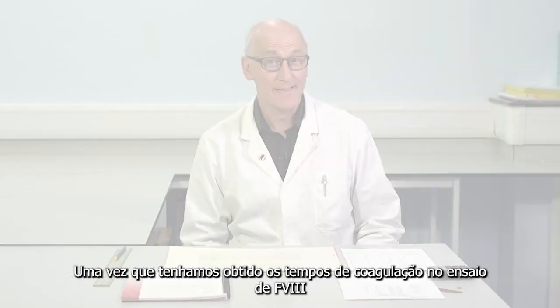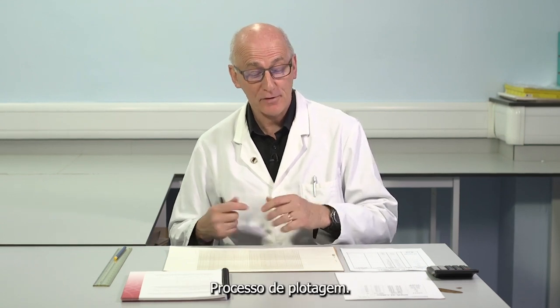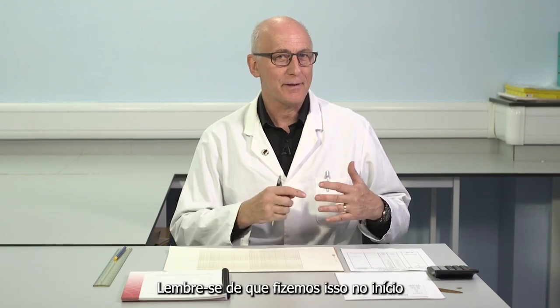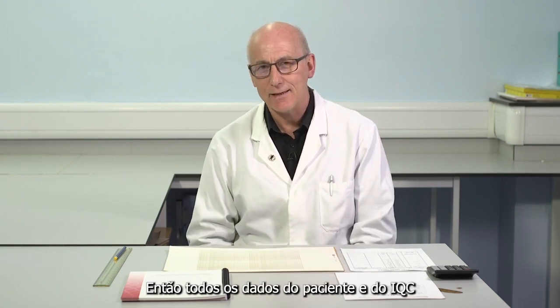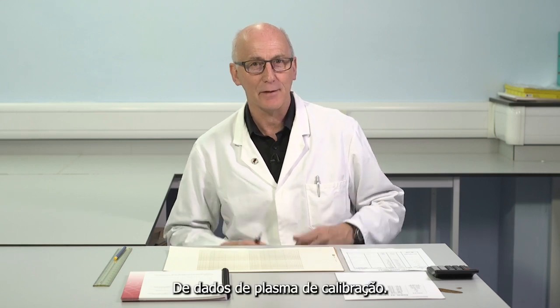Once we've obtained the clotting times in the factor VIII assay, we need to make some decisions about the data before we can even move to the plotting process. The most important question relates to the clotting times we've obtained with the standard calibration reference plasma. Remember that we did this at the beginning and again at the end of the assay, so that all of the patient and IQC data were generated in between, sandwiched between those two sets of calibration plasma data.